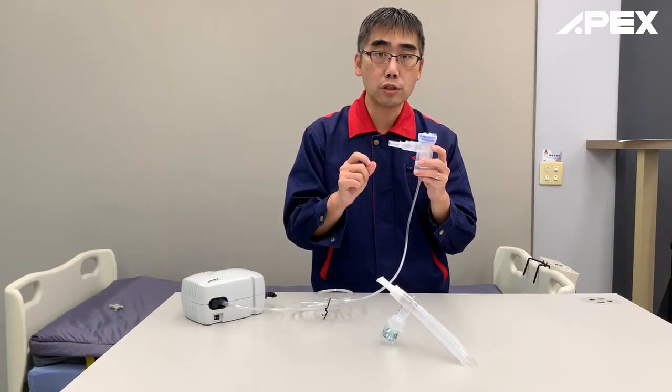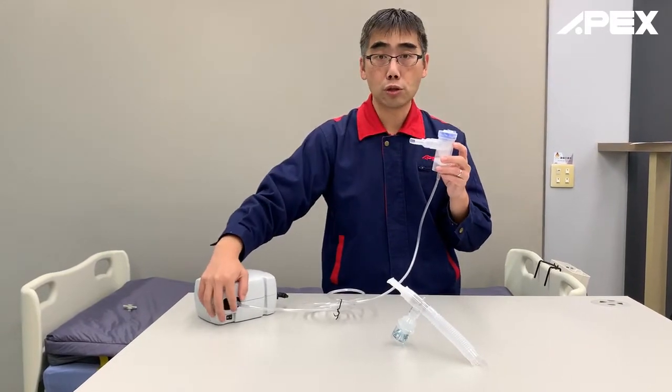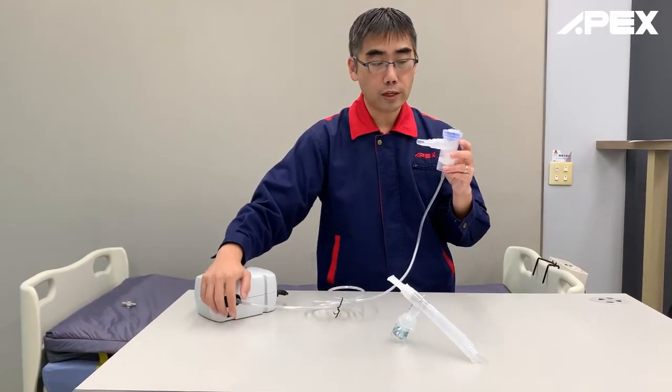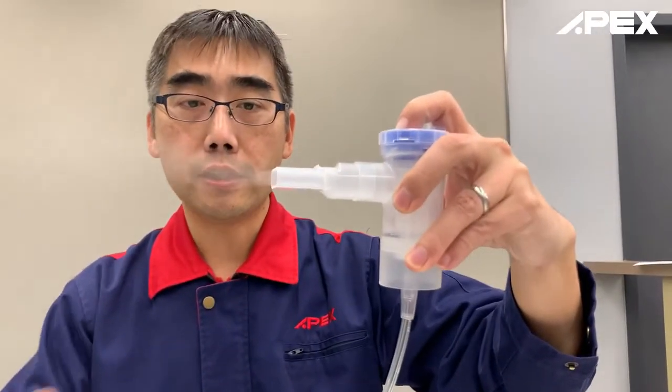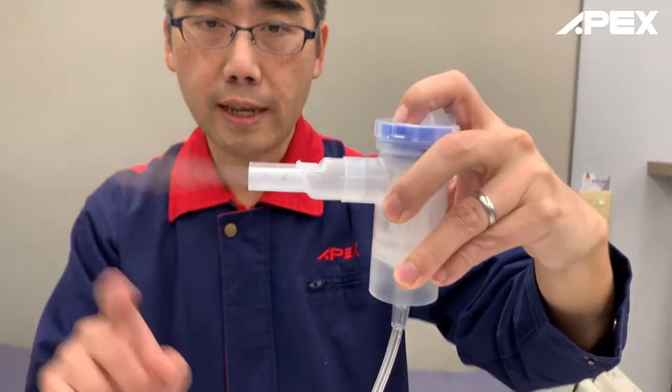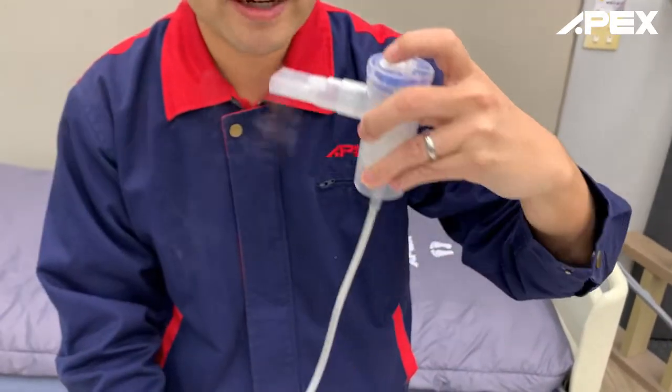That's one benefit — reducing medicine waste. Secondly, if you want to switch to continuous mode, you can do so by pressing the button on top. You can see the aerosol bursting out continuously. So it can switch into either breath-actuated mode or continuous mode — that is a key advantage.